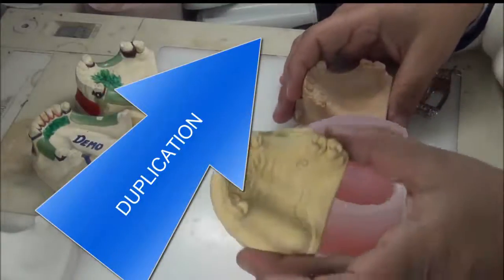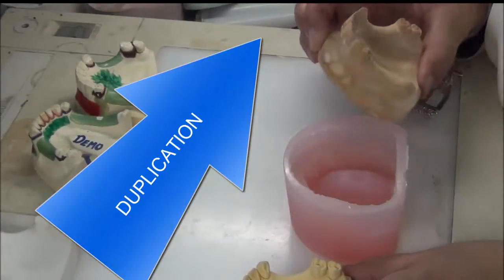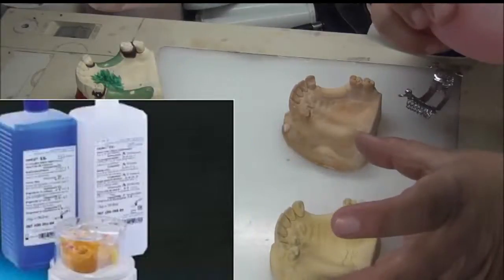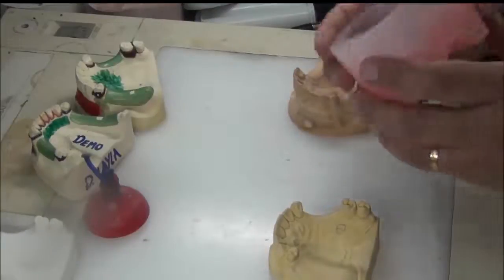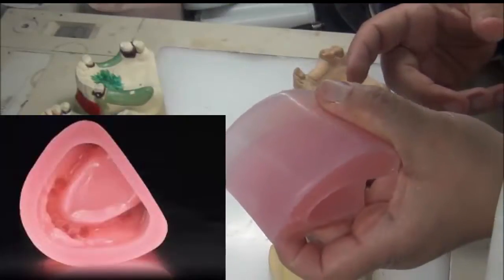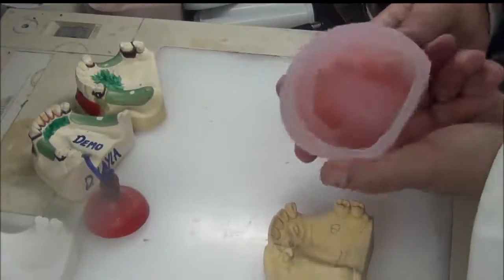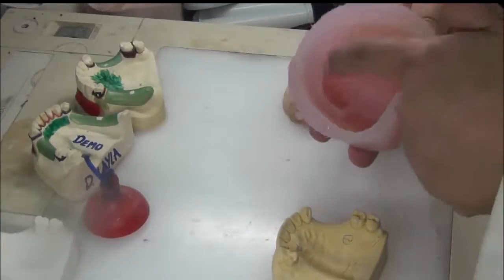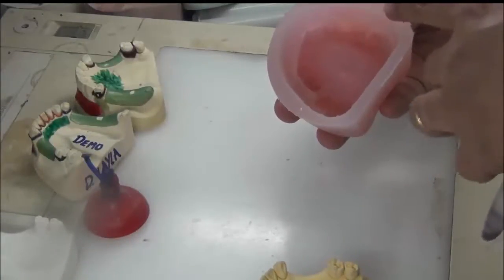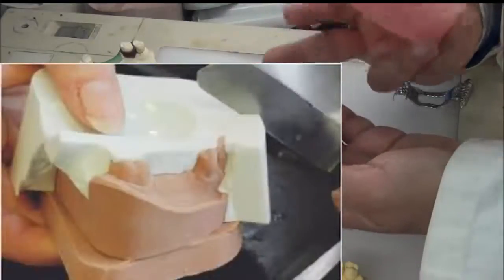In the duplication process, we want to change the secondary cast into a refractory cast. We place it inside a ring, surround it with duplication material — either agar-agar or silicone duplication material — poured all around it. Once we take out the cast, we have an impression of it, and we pour inside a liquid investment material mixed per manufacturer instructions. Once it solidifies, we remove it and have the refractory cast.